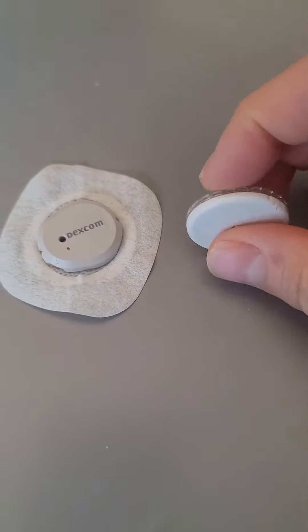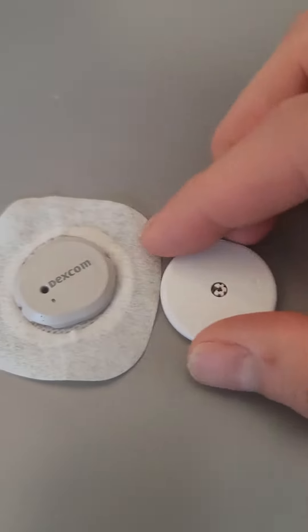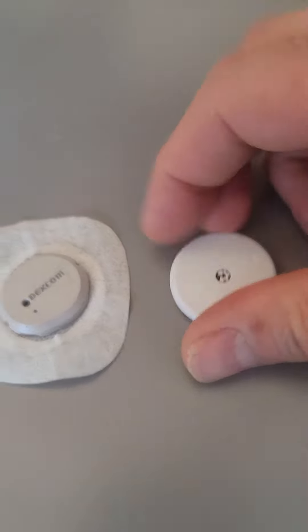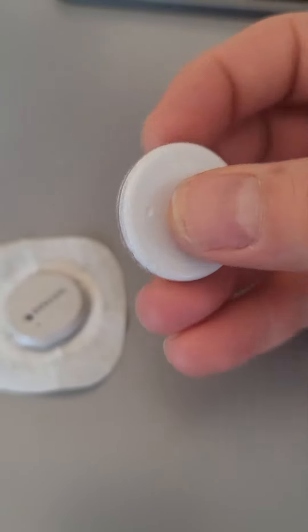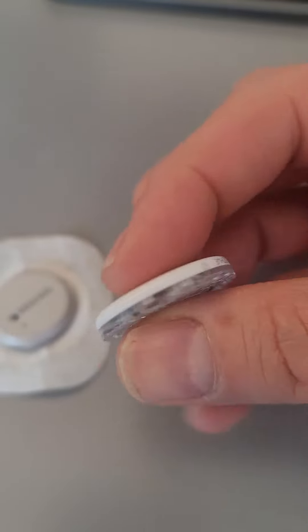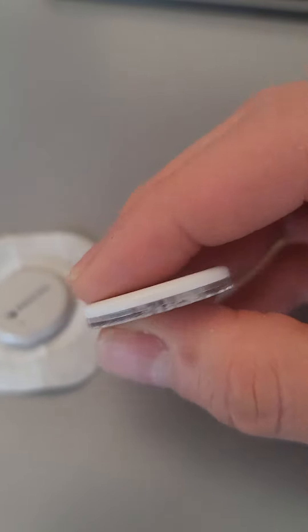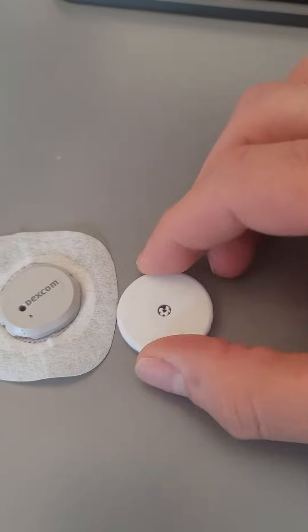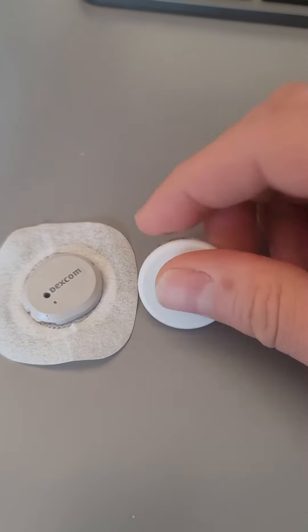As you can see, this one is about the Libre 2 and there's no edging — all the corners are rounded, all around. There's no way for this sensor to get attached to any other objects when you're wearing it and get knocked off.